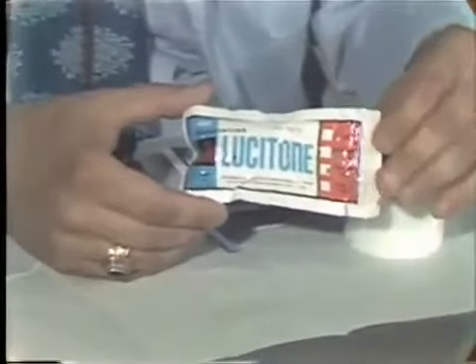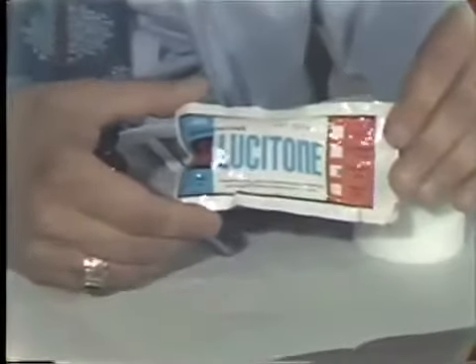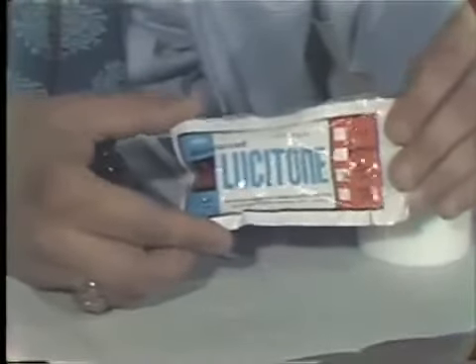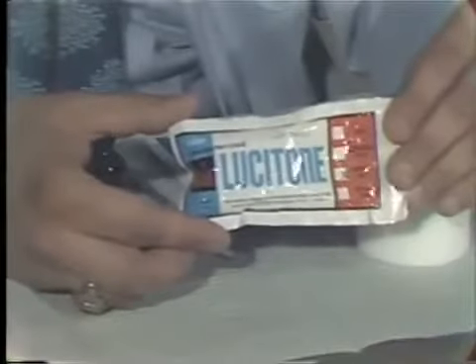We are now ready to proceed with packing our denture flask, now that we have boiled out the wax and the base plate. To begin with, we are going to mix our acrylic. We will be using Lucitone, which is a very good heat-cured material, and I am going to proceed to mix the material now and then let it set while we proceed with the other steps.